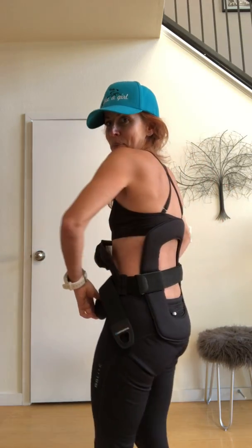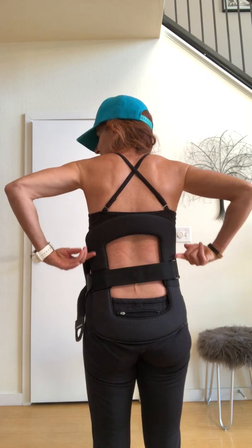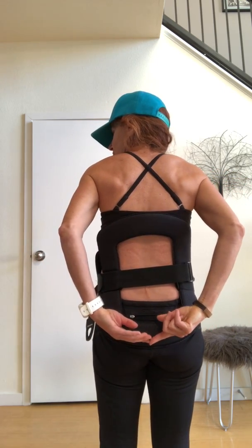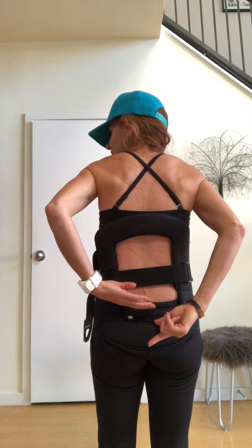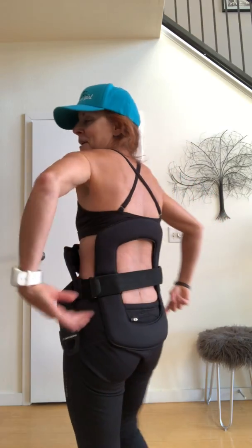It is this really interesting frame that I'm wearing. The back is framed so the electromagnetic stimulation comes from this area, and it's positioned right around — I don't know if you can see part of my incision right here — but it's got to go right around the fusion spot.